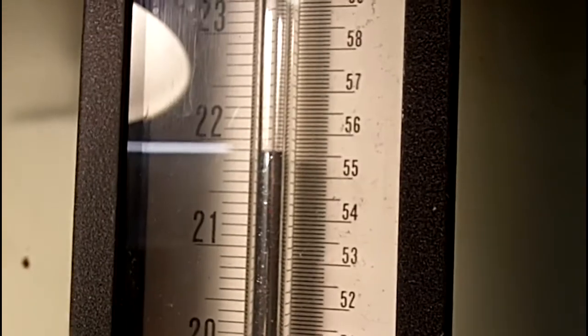This is what the regulation mechanism, this is what any other suction regulator would be delivering. It would be delivering about 550 millimeters of mercury.